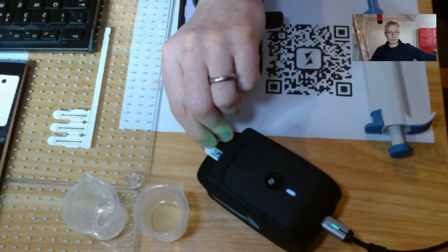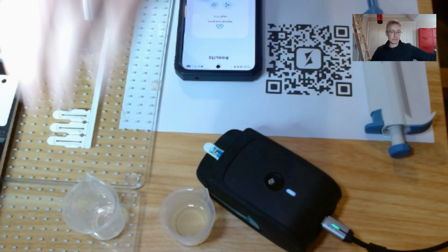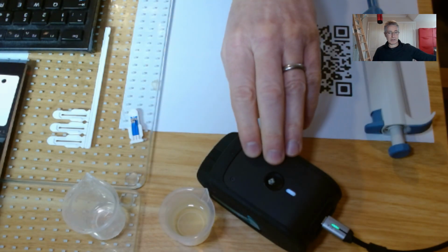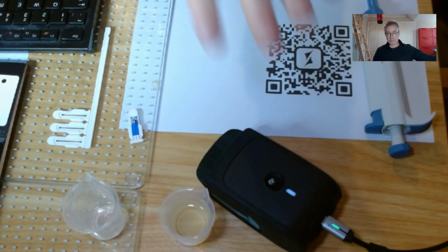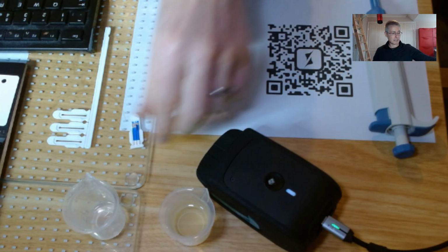So I have some sodium sensors, slightly gross. I have some urine here, and I have a little source of sodium as well. Now at ZP, we obviously have sodium sensors, we have readers. Understand that the readers and the analog front end, etc., are fully developed in-house at ZP. So the electronics are all ours, let's say.